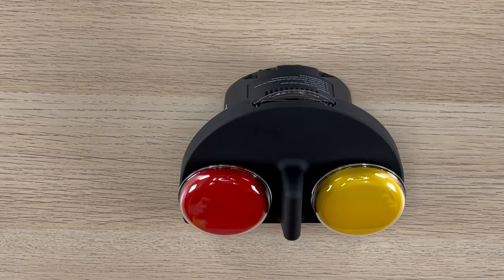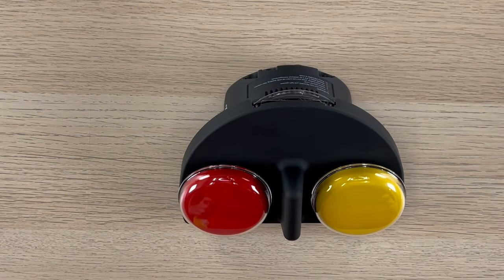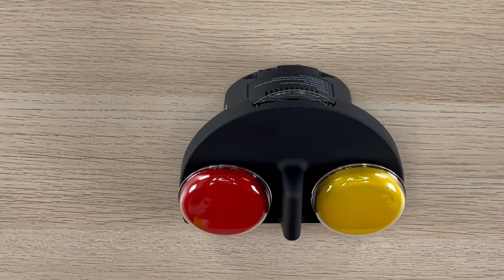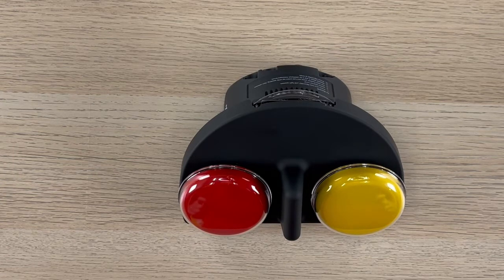Today I will be demonstrating the steps to clear all messages using the iTalk2 as an example.